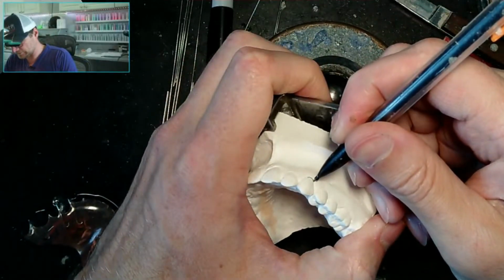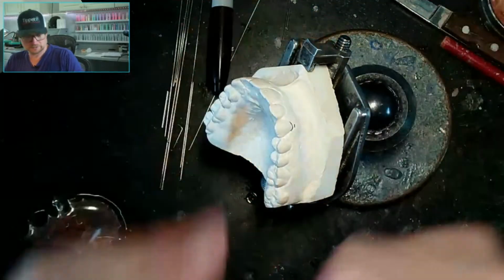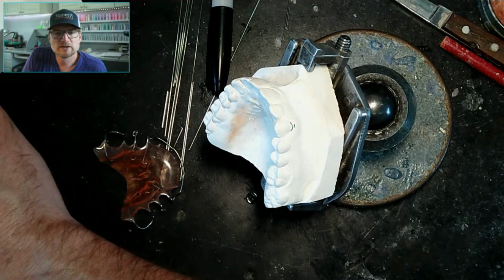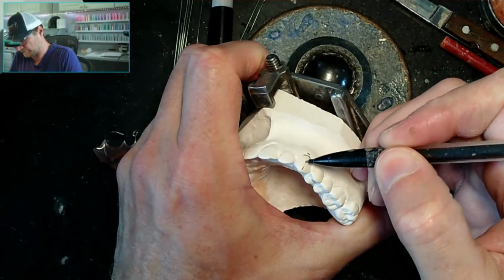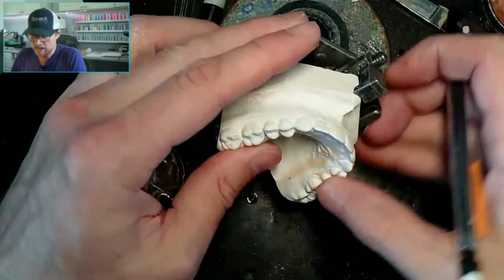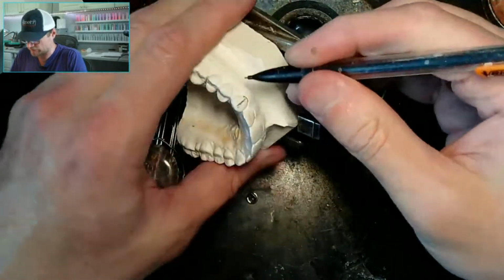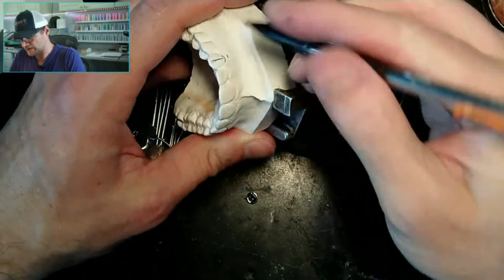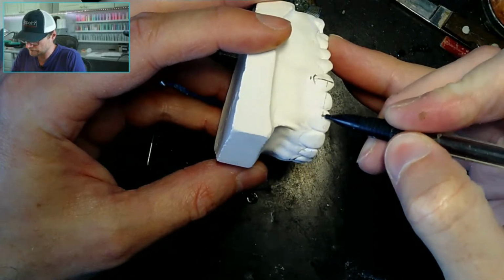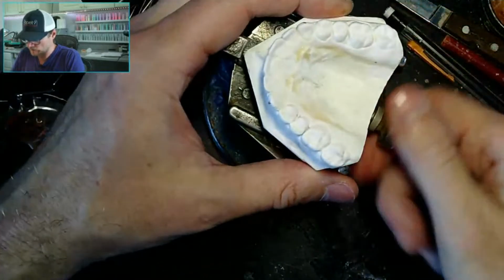So we got the height of the contour here, right? So we need to be 2 millimeters there. Let me flip back to that. Make sure I'm doing this right. Yeah, and then right in the middle, kind of the height of contour of here. Cuspids are bisected on their long axis is what this says. So we'll bisect this cuspid with the height of contour. We'll eyeball 2 millimeters. So that's how tall the loops need to be. And then we just need to make this wire middle third of the incisors. All right, so let's do this.